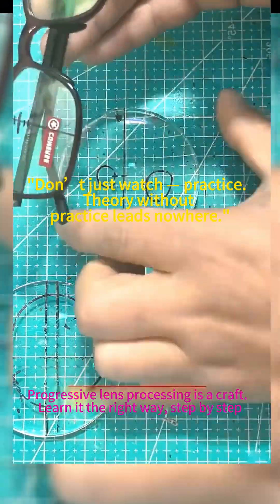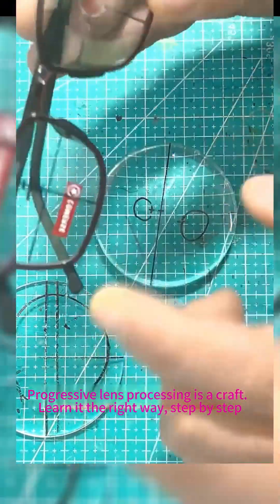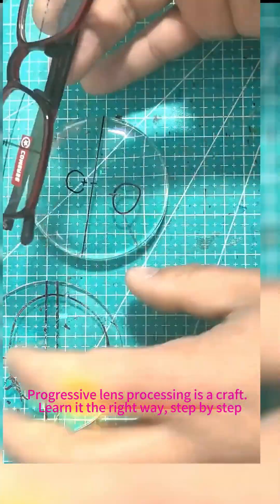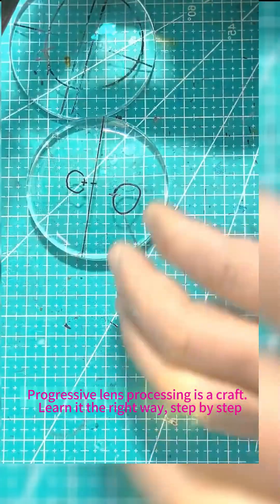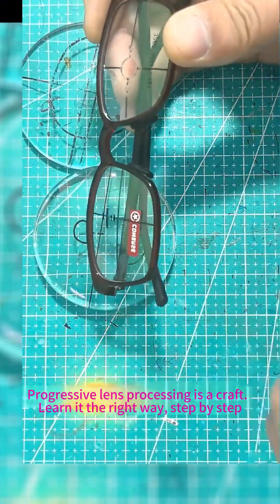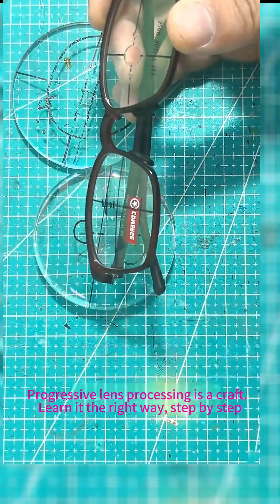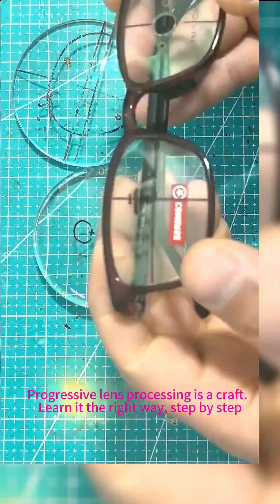Today, I'll show Xiaobai how to process progressive lenses and how to mark the channels in this video. Like, save, and follow to avoid just watching without practicing — theory without practice leads nowhere.